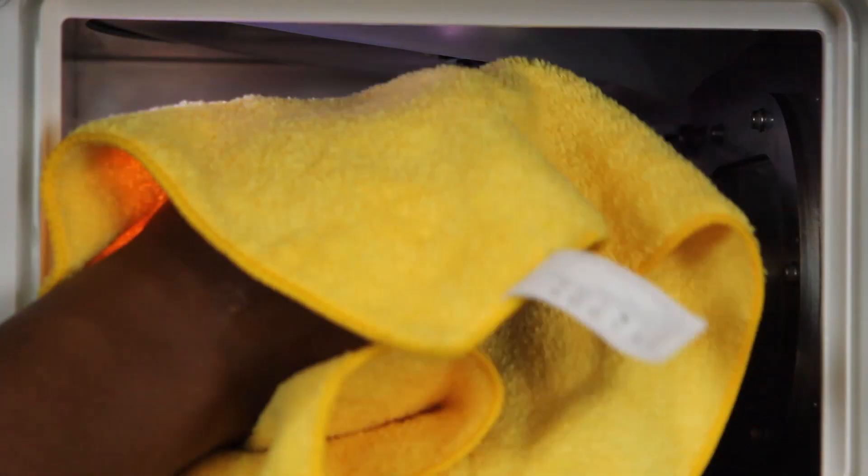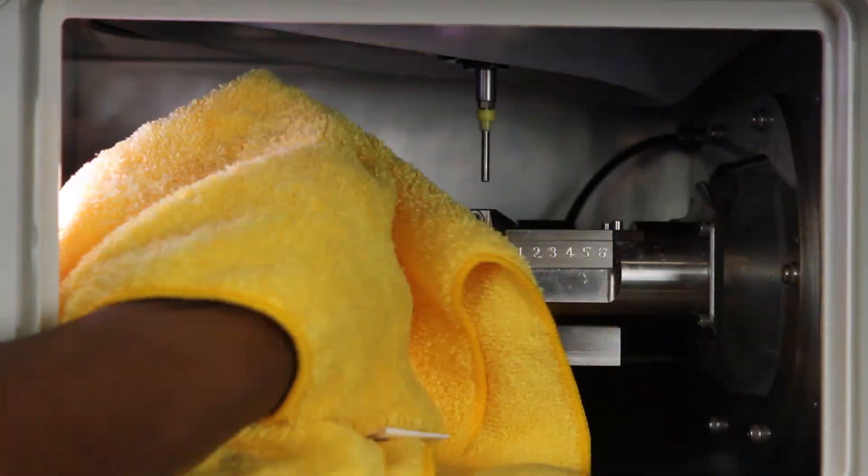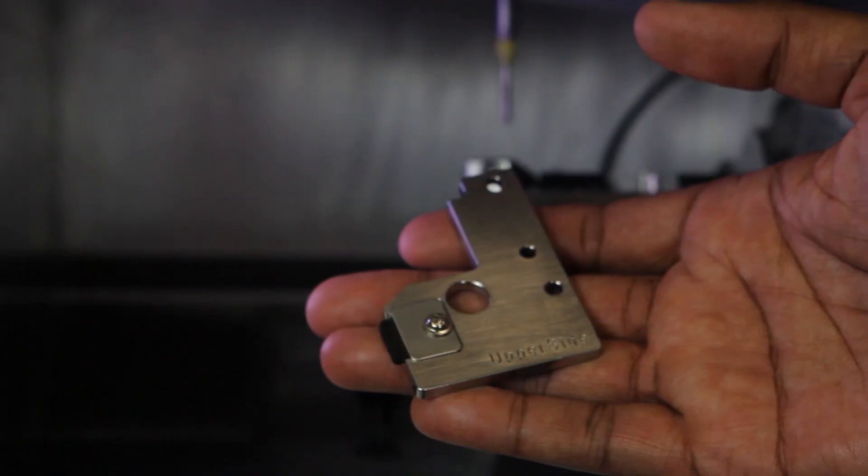Use a dry cloth to clean the top of the rotary axis, milling burr sensor, and automatic tool changer. Insert the ATC magazine correction jig.